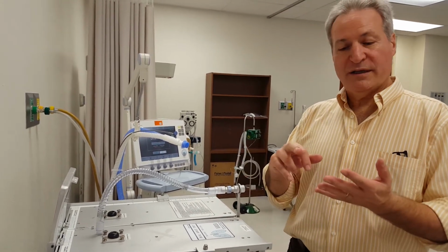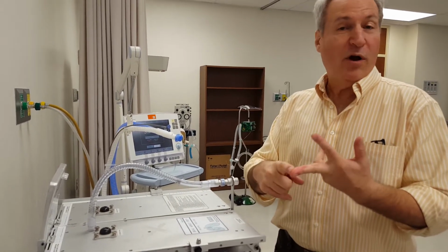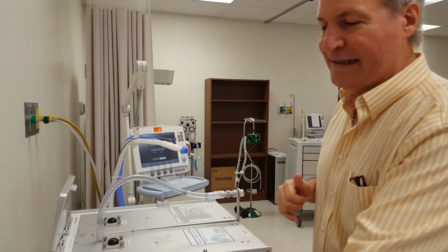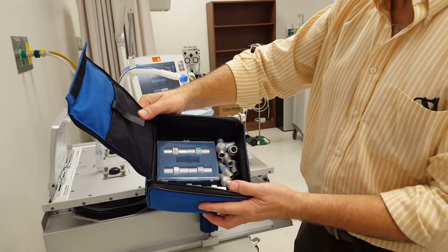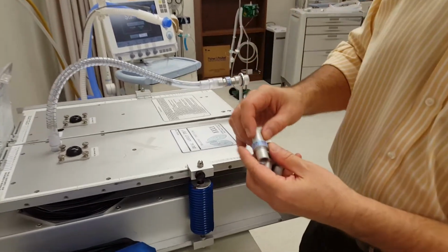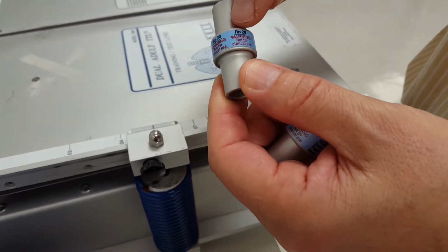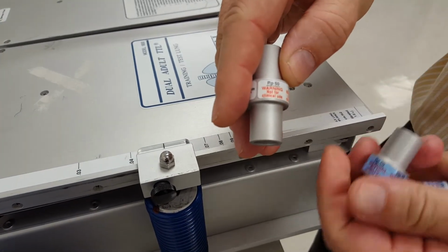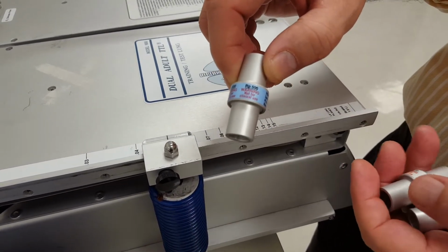But what if we have someone with lots of secretions, with inflammation, say a burn patient from smoke inhalation, or bronchospasm? Asthma would have all 3 of those, then Raw goes up. Well, we have a handy dandy little blue container for each of our lung simulators that has a number of different airways resistances. So I took out 4 just so we can show you how these work. The resistance with 5 is already there. Here is a 20. Notice resistance is set at 20. This one is 50. And lastly, if you want a huge amount of Raw, 500.